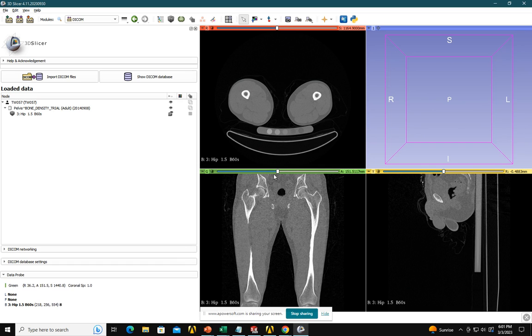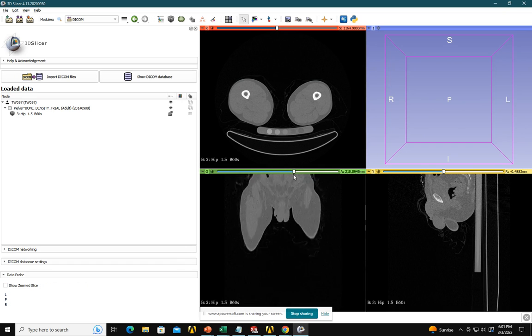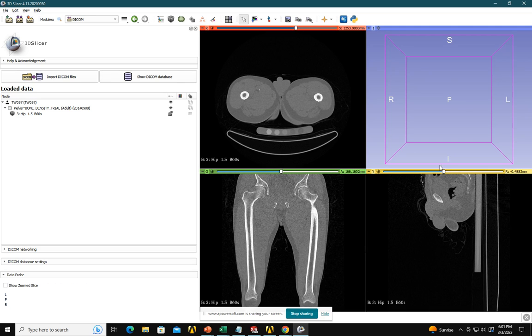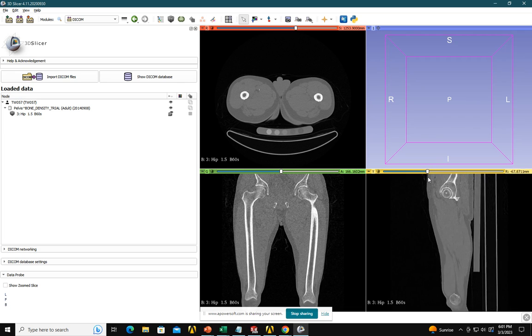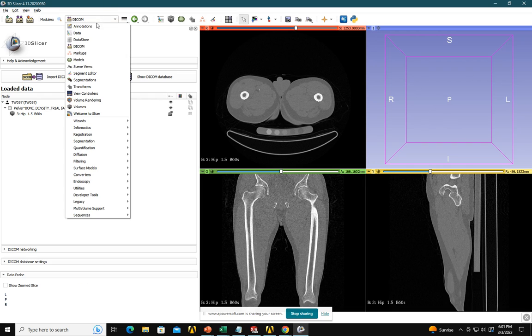This is like the front view. This is like the top view. And this is like the side view. The first thing we will see is the 3D view here.